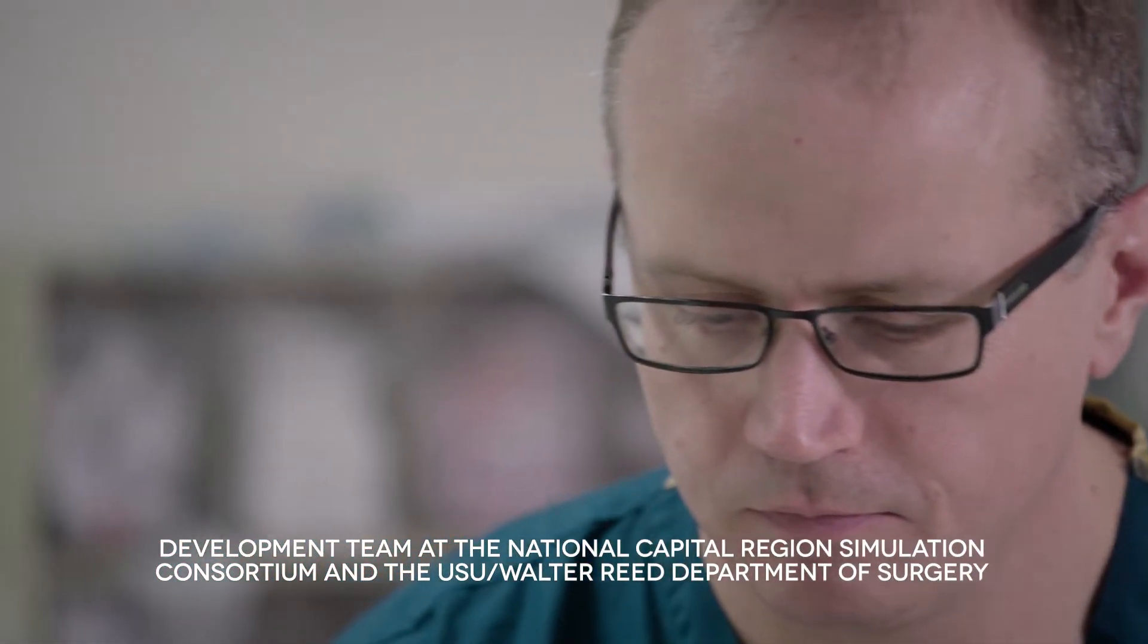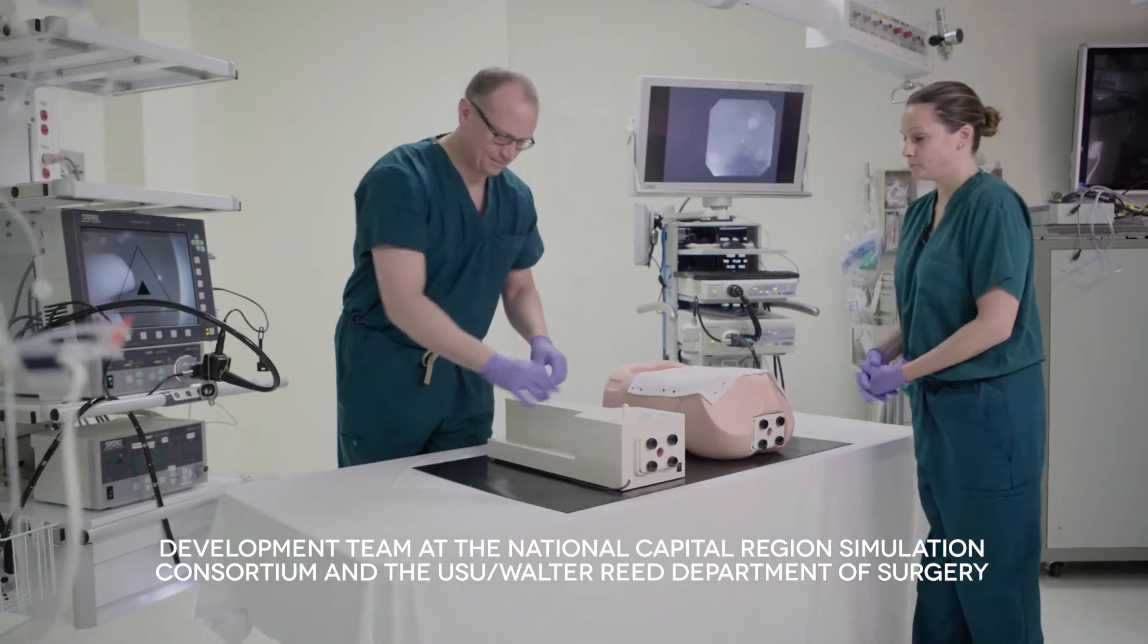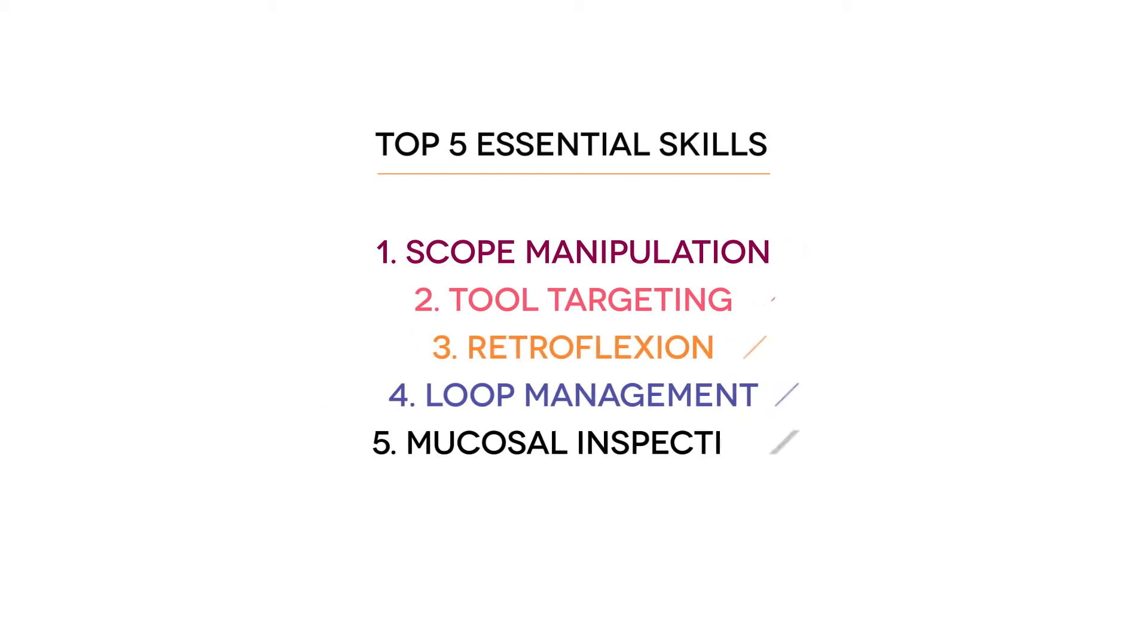Developed by Dr. Matthew Ritter and his team, the ETS trainer provides a stepwise instructional program for acquiring five essential skills to perform the procedures effectively.